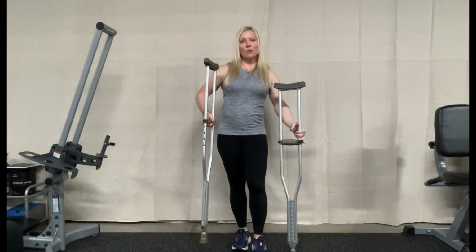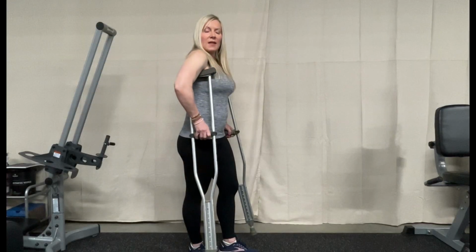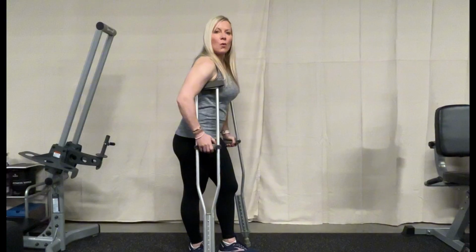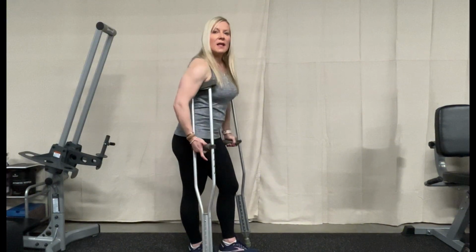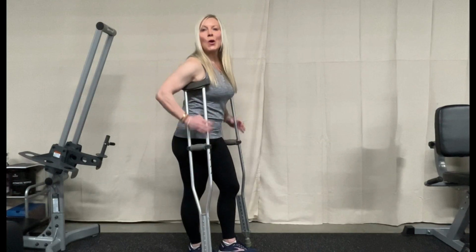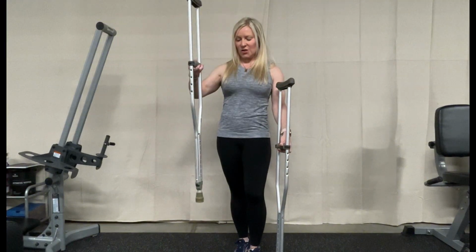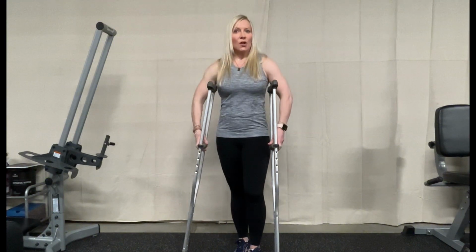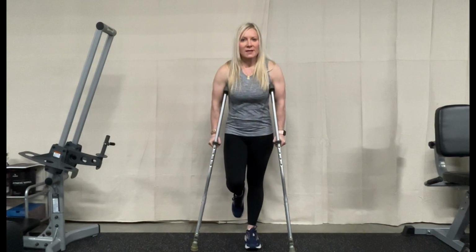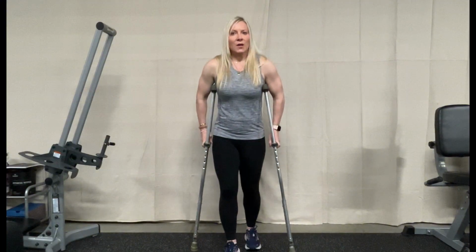Again, with our crutches, we want to make sure that it's not tucked up underneath that armpit, but we have that space and we have a slight bend in that elbow. We don't want these handles too far down. These again are adjustable. I had to fit them for my size, which is pretty small, so I had to bring the handles all the way up to the top, and the crutches all the way down to the lowest point. With crutches, a lot of times we'll be maybe non-weight bearing on one side, or we might be partial weight bearing, just allowed to put a little bit of weight in.